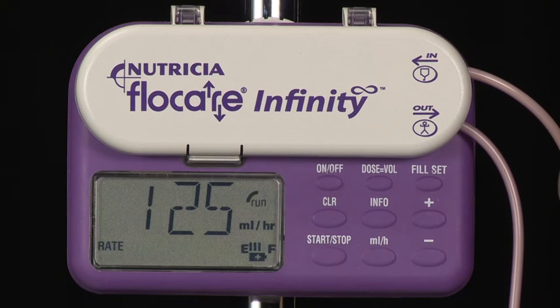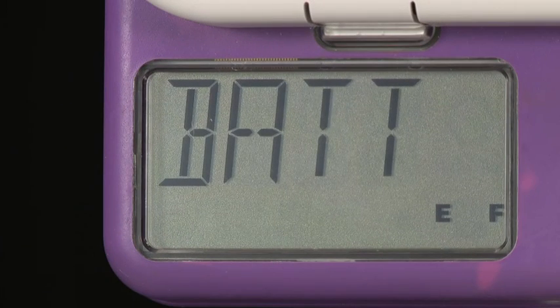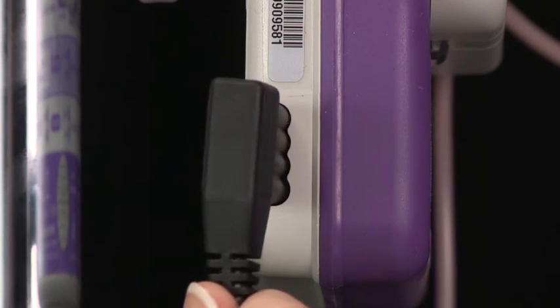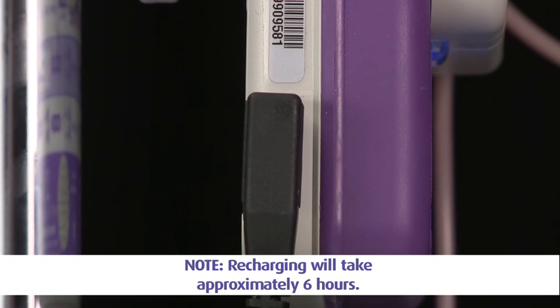The number of bars that are visible denotes the status of the battery. Each bar represents an estimated 6 hours of battery life at an average flow rate. The battery symbol will begin to flash when there is still approximately 30 minutes of battery life remaining, at an average speed of 125 milliliters per hour. In addition, the pump will beep every 3 seconds. As soon as you can, plug the pump into the mains to continue to run the pump and to recharge the battery at the same time.